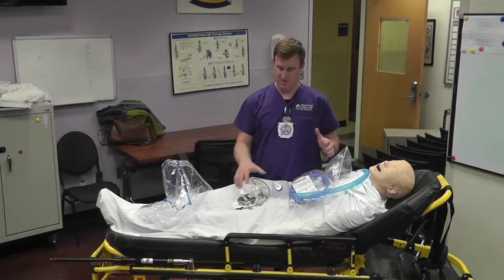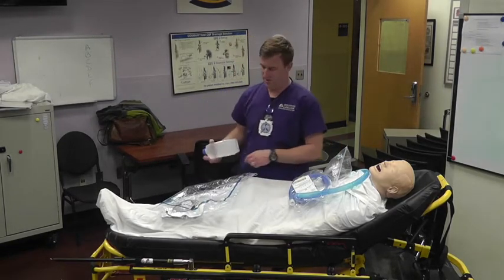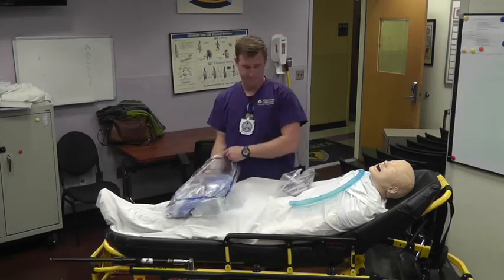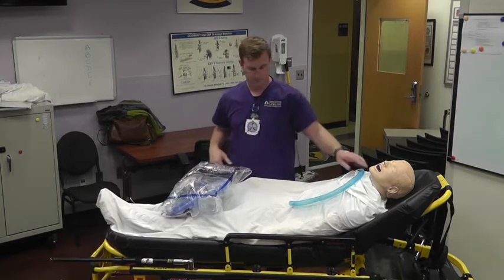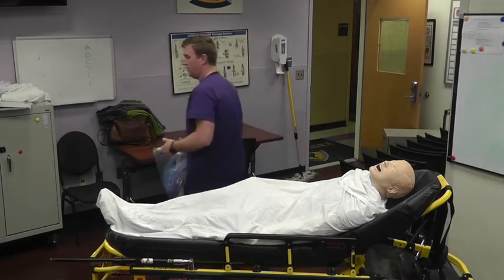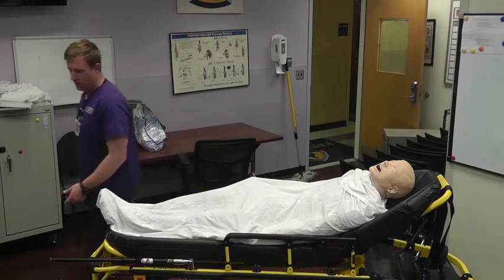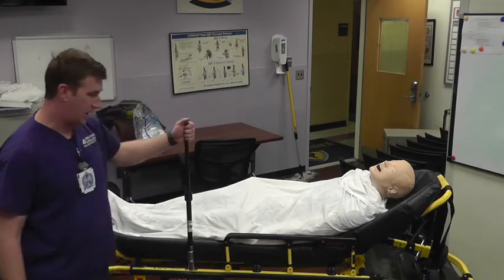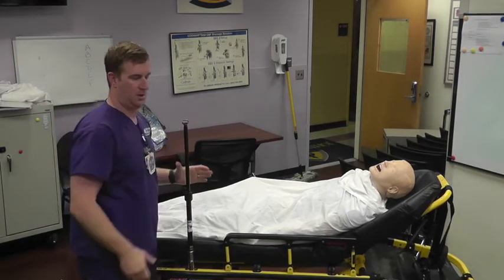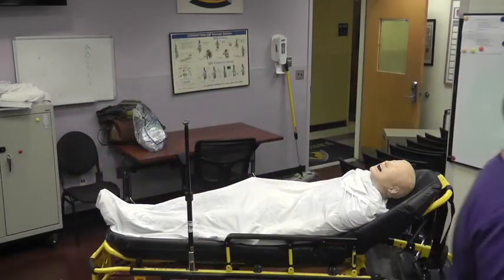That's what's in your pushback — make sure it's in there. We're going to pre-package these and have them waiting for you. When you get to the bedside — you can do this ahead of time or at the sending facility — you're going to have an IV pole on the left side of the stretcher and we're going to connect the heater to that.